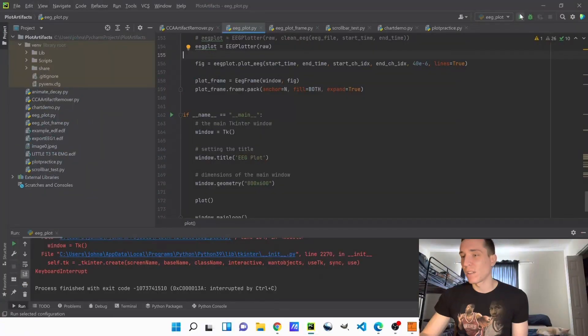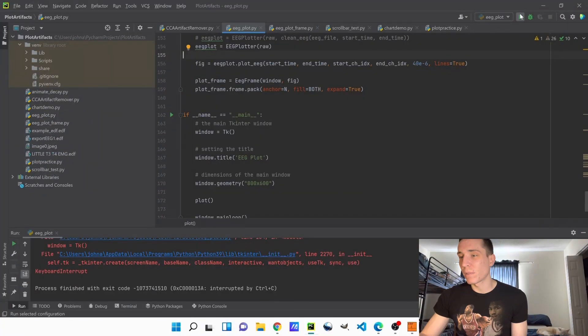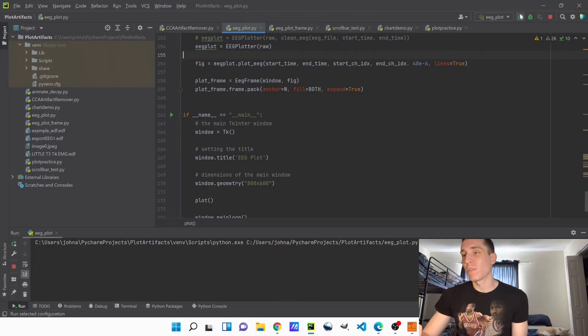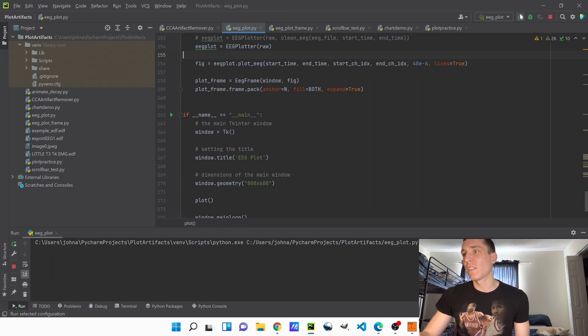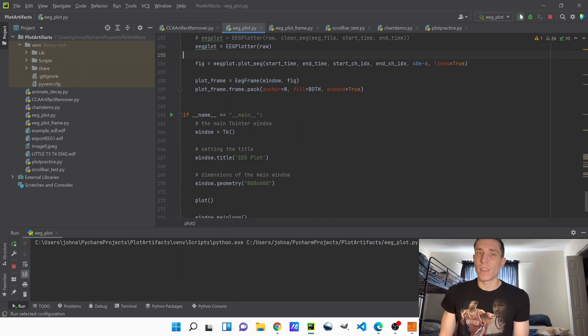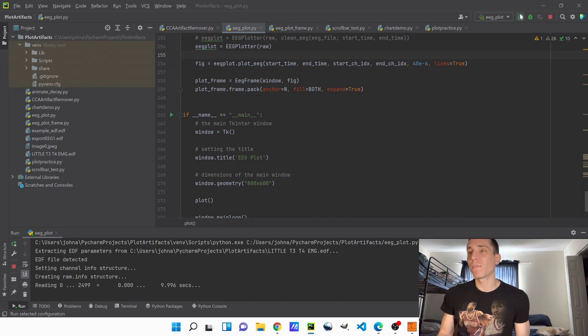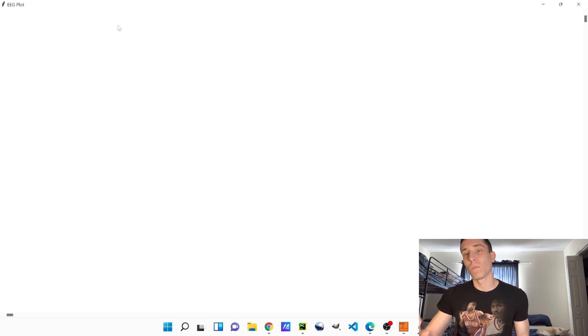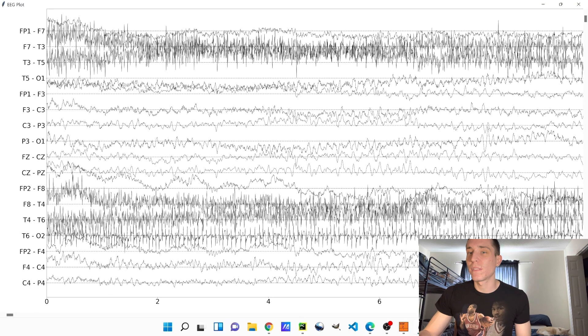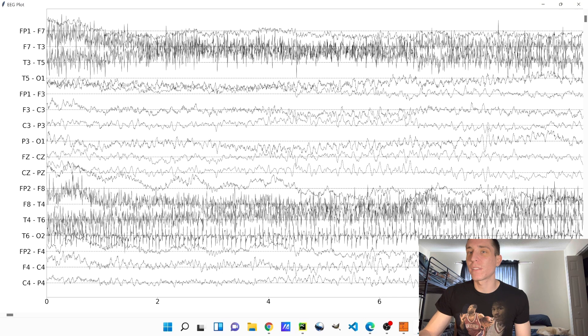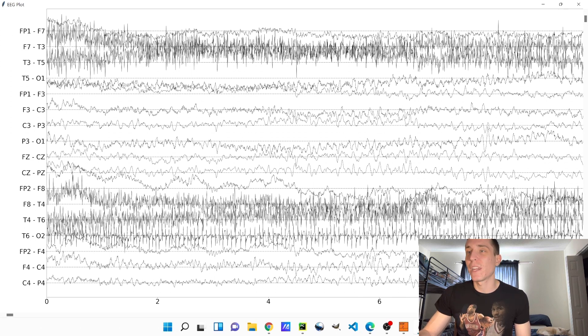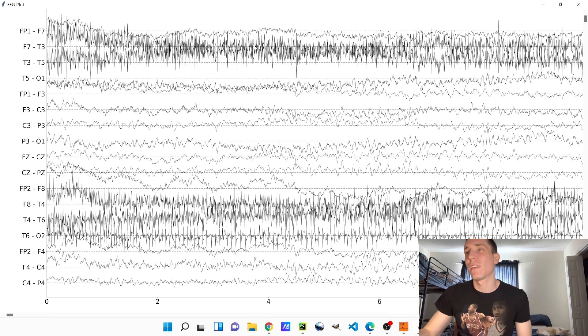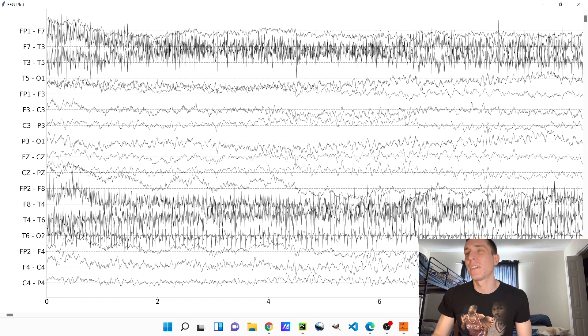For example, I wanted to show a muscle artifact EEG where our filter filters out the muscle artifact. Let me pull it up here on my computer. I'm going into the code where I created my muscle artifact reduction filter. Let's look at the first basic EEG before filtering anything out. We can see that we have muscle artifact most prominent in the T4 area and T3 area. So both on the sides of the head you're seeing muscle artifact that could be coming from a clenched jaw.